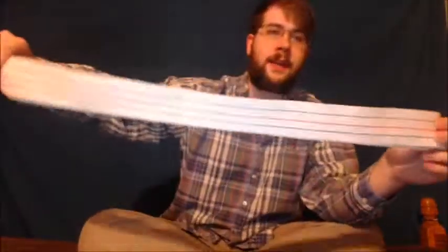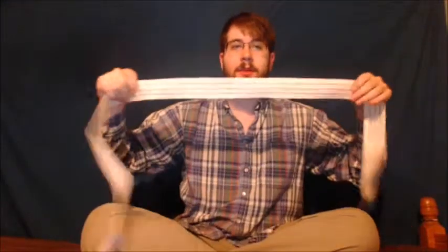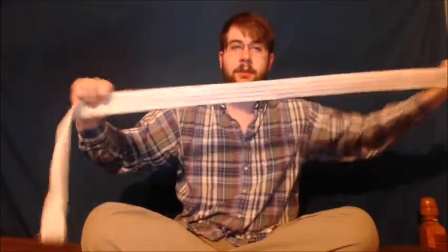Hello, today I have a gait physical therapy belt. This one does not have loops, but they do have a variety that has loops that help you pull it up and position it correctly. Even without the loops, this is pretty easy to secure in place and get it where you want it.